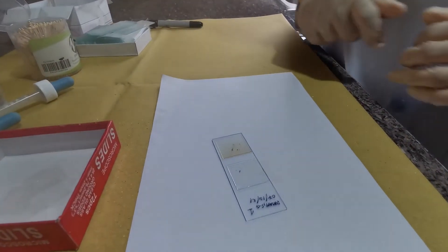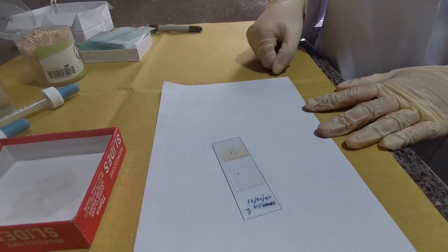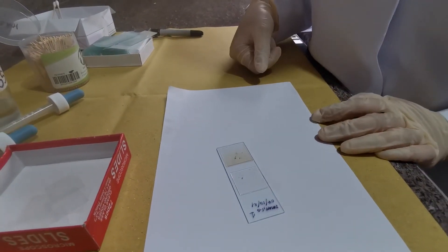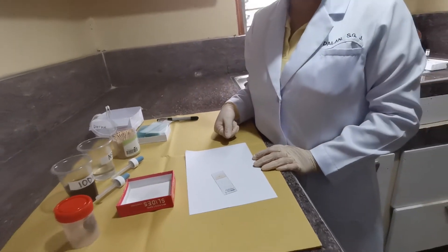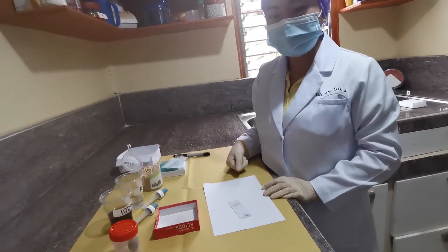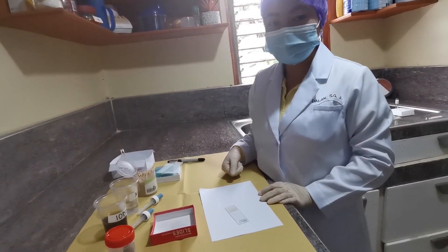So, that is it for our direct fecal smear. We can now view it under the microscope and record the result.